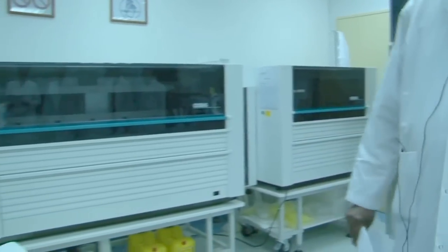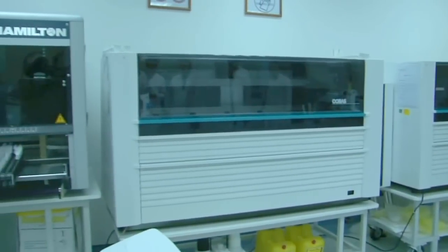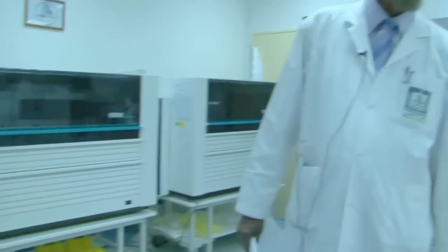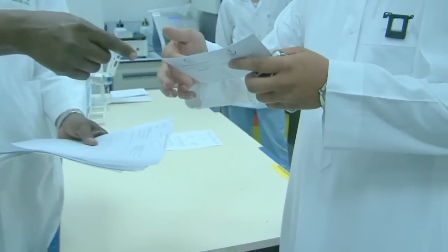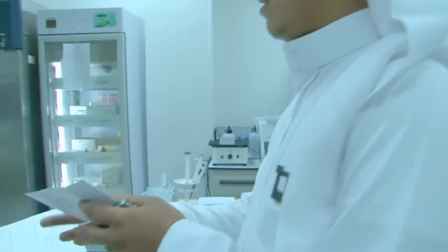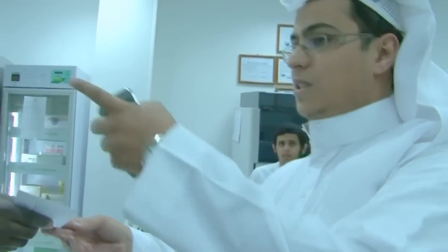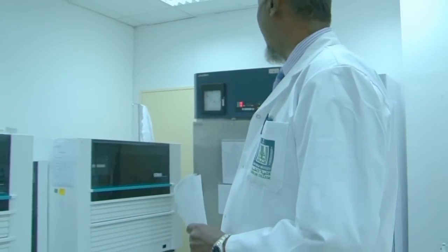So what diseases are you screening for? For hepatitis B virus, hepatitis C virus, HIV 1, 2. Very nice. So you are doing the 4 viral tests here. HBS is by ELISA. PCR is for hepatitis B virus, C virus, and HIV only. So that is by serology, and this is by PCR. RNA, DNA. So this is a PCR section, which is very specific, very sensitive, and a very rapid test.